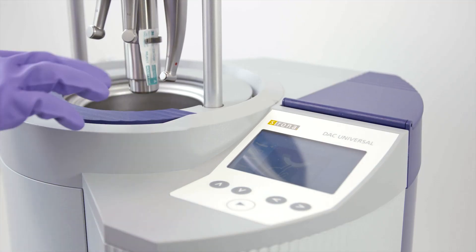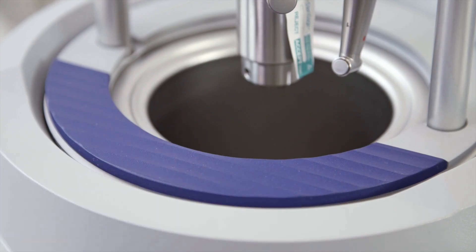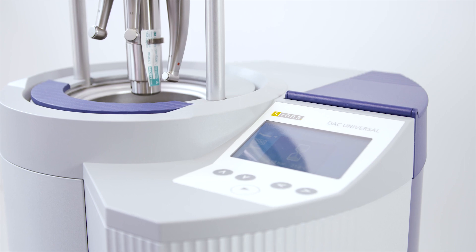By clicking on the start-stop button and then pressing the safety ring, the selected program is started and the lid closes.